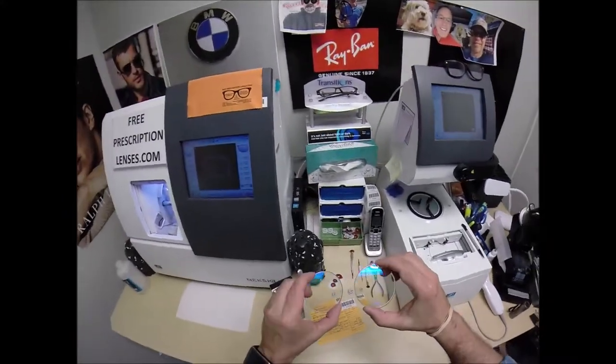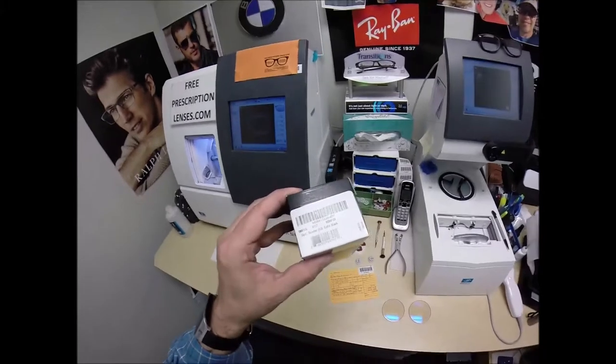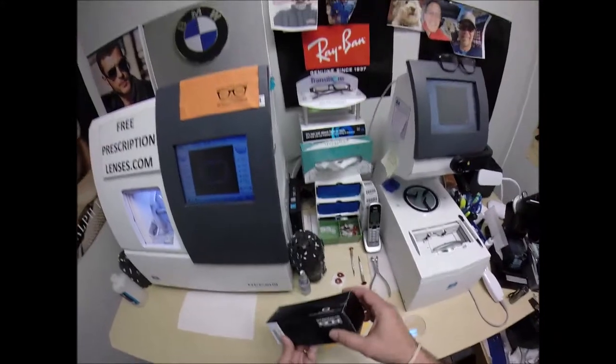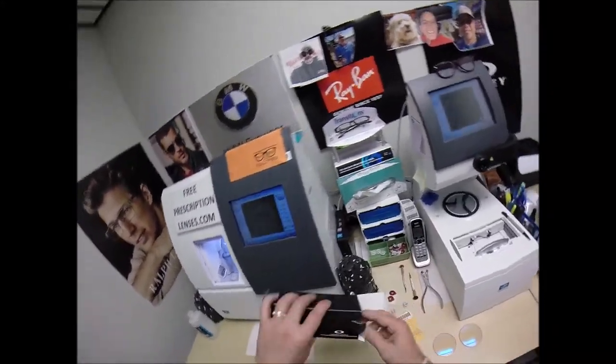Transitions extra active with the blue flash mirror for your Oakley 8123 Sunder, color 01 satin black in the 53 eye size. Let me take everything out of the original packaging as Oakley sends it to me.